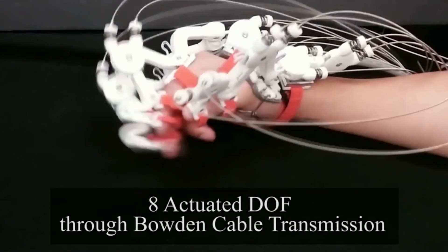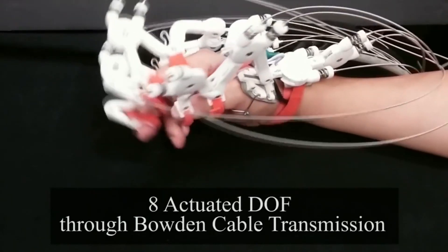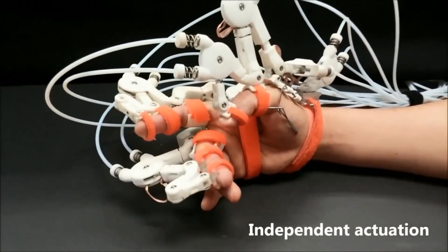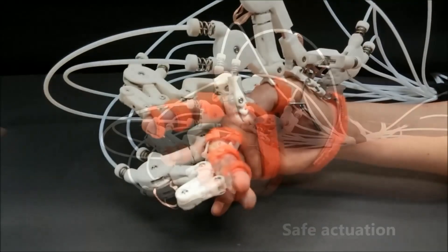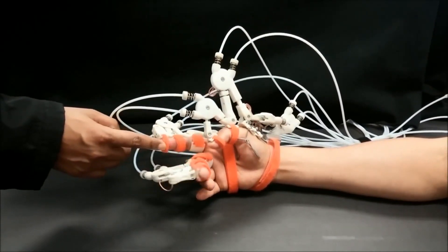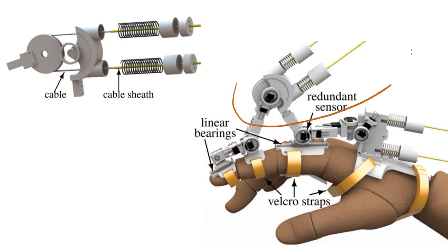SEAs are used in a variety of robotic controllers. The UT Maestro Hand Exoskeleton is a device that provides assisted movement to the multiple degrees of freedom of the hand in order to restore motor coordination and function while remaining practical for deployment in a clinical environment. It uses an SEA on each finger module to act as a pure torque actuator and helps in reducing the undesirable forces on the finger joints.